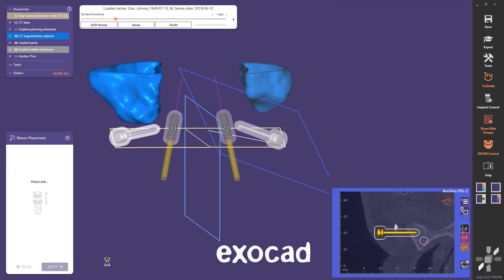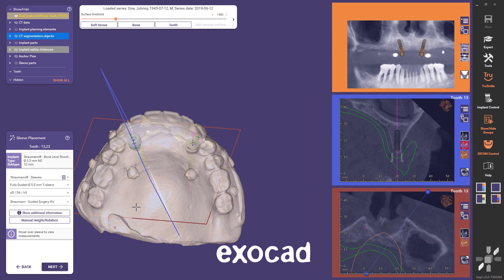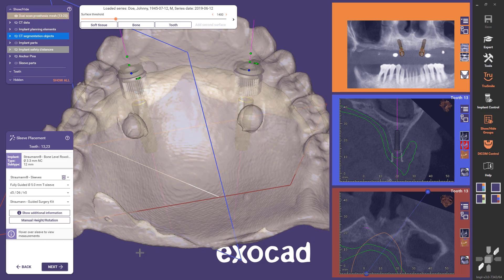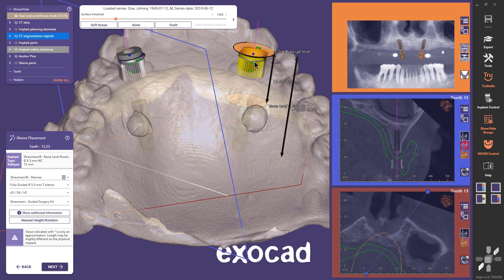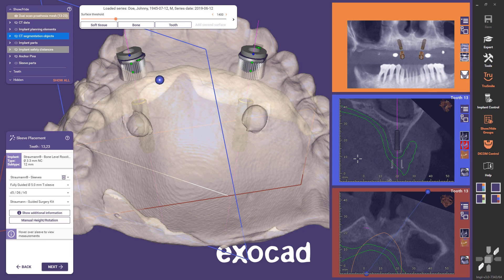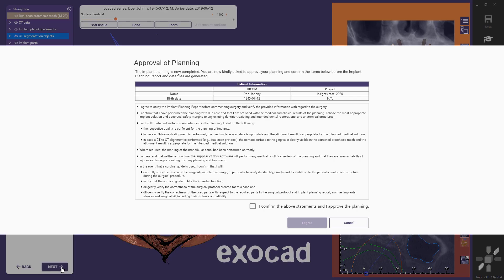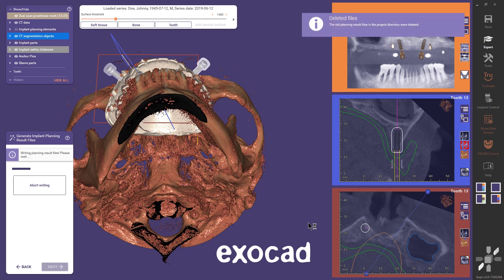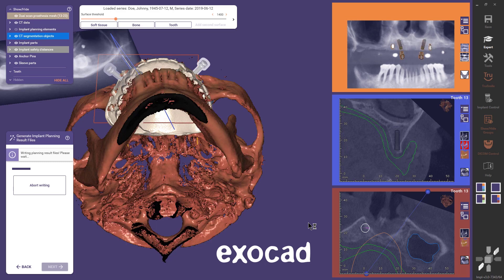I move on with next and it is time for the sleeve placement. Since I placed implants for which there are compatible sleeves for a fully guided workflow, these sleeves are automatically placed. This guided system offers three defined heights for the sleeves, and I will select the highest position to make sure the sleeves are not touching the gingiva. After the sleeve position is finished, it's time to approve the planning. As I said before, this must be done by the doctor, but for now I will do it myself. If this was a real situation, I would save a scene and send it to the doctor. They would open the scene, make the needed adjustments, approve the planning and send it back to me so that I can design the surgical guide.